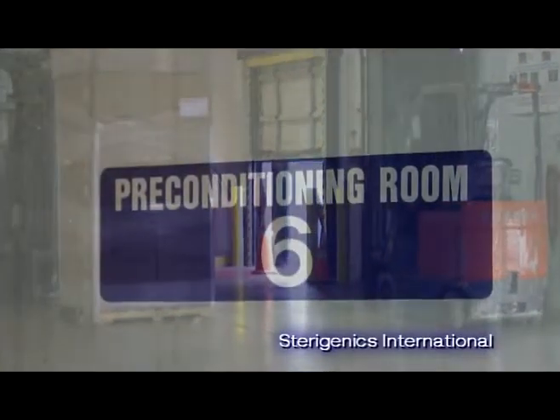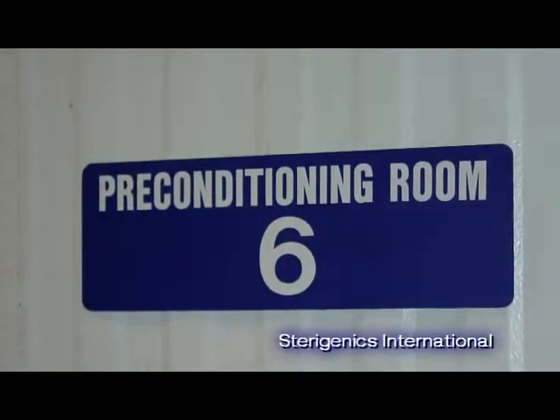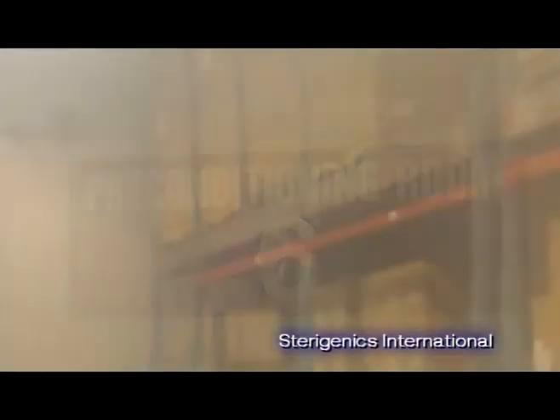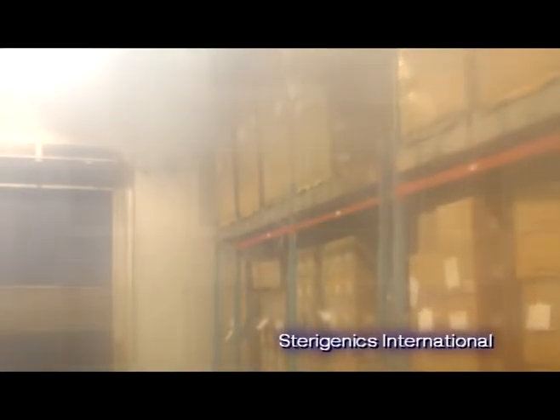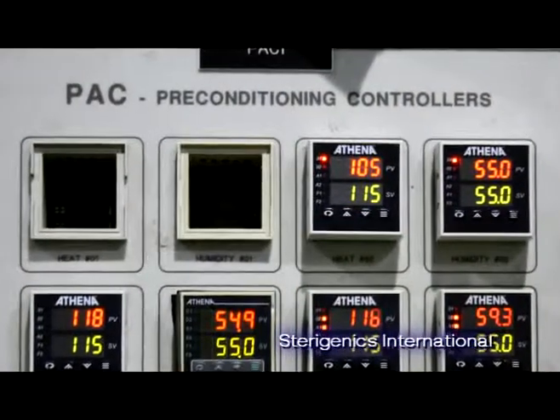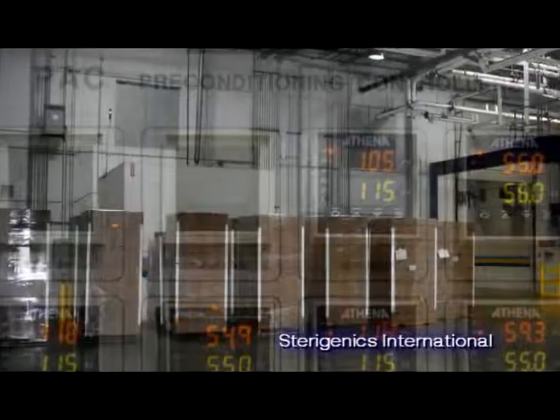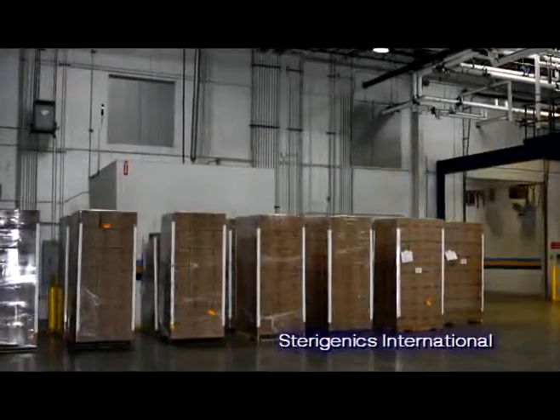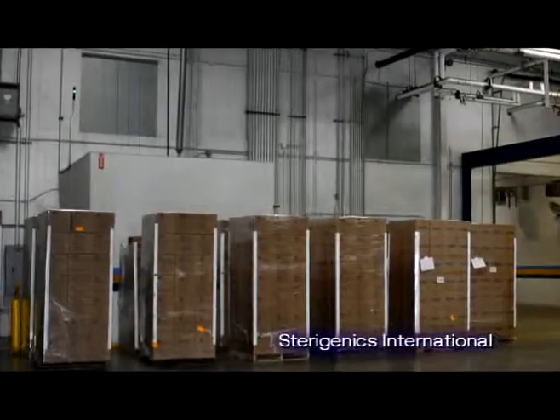For most EO processes, the first necessary step is pre-conditioning. Pre-conditioning is achieved by raising the temperature and humidity levels of the packaged product. This helps to ensure optimal performance of the process. Typically, pre-conditioning occurs in a separate area and usually takes between 12 and 48 hours.